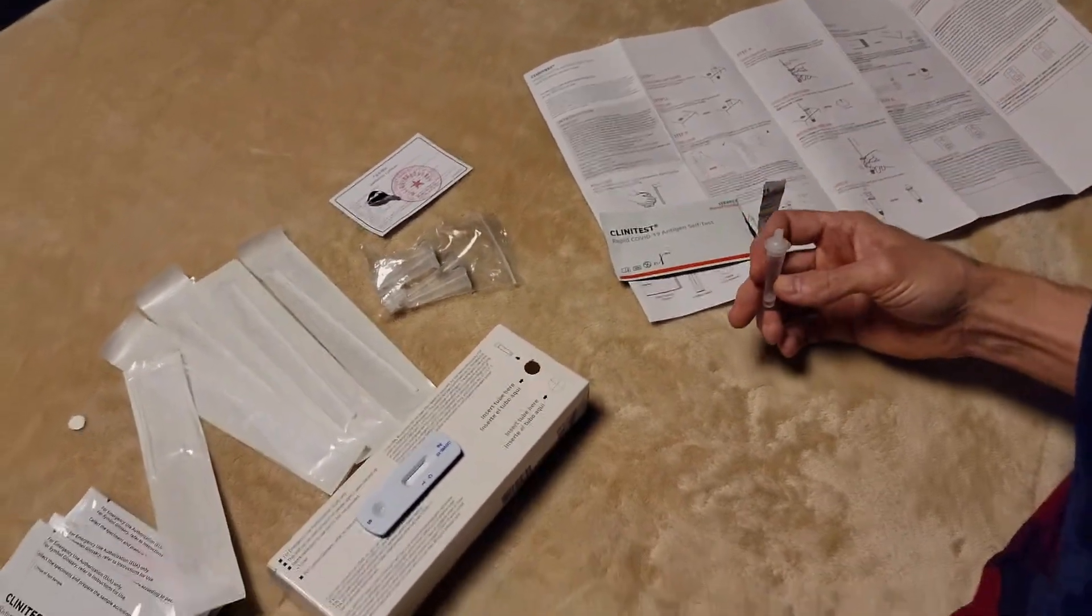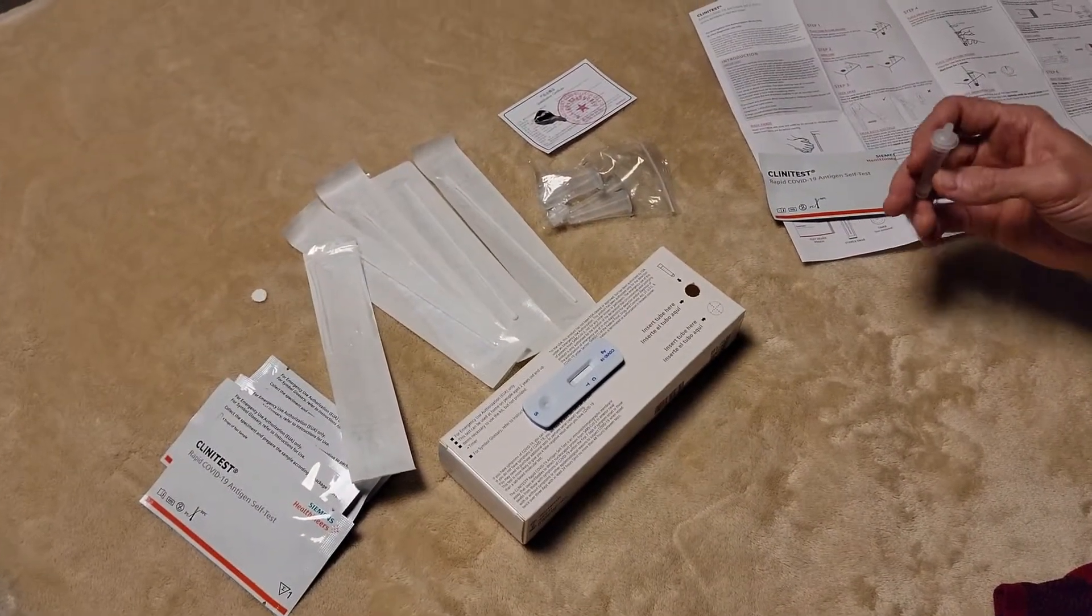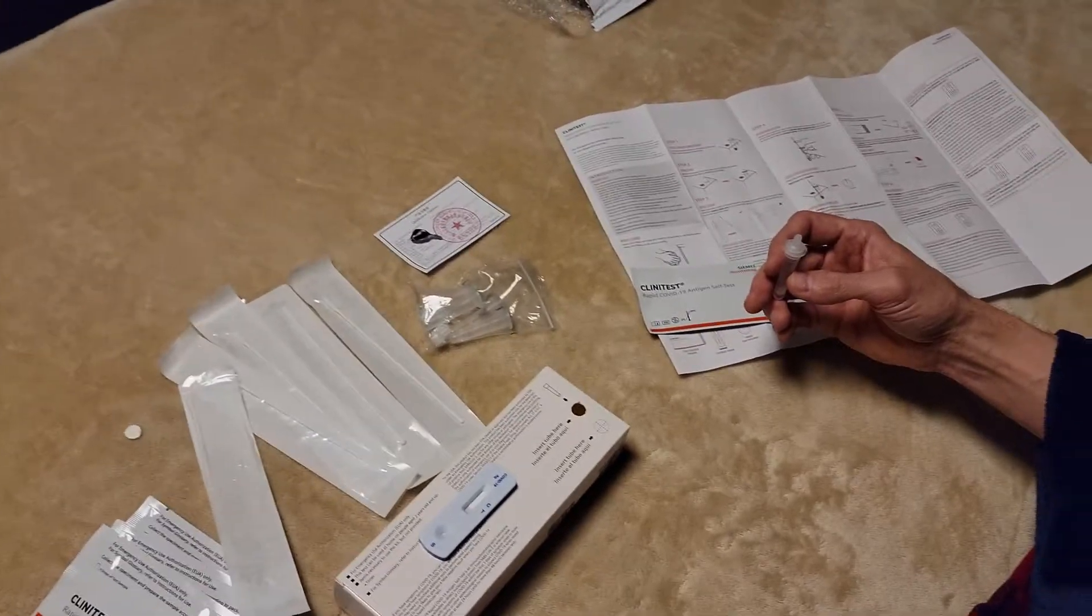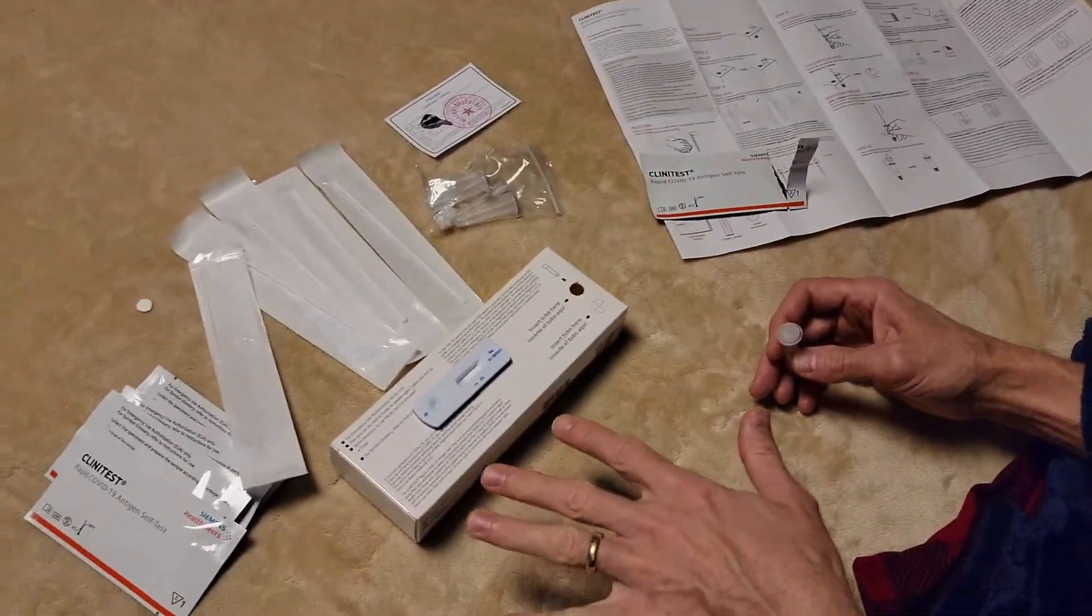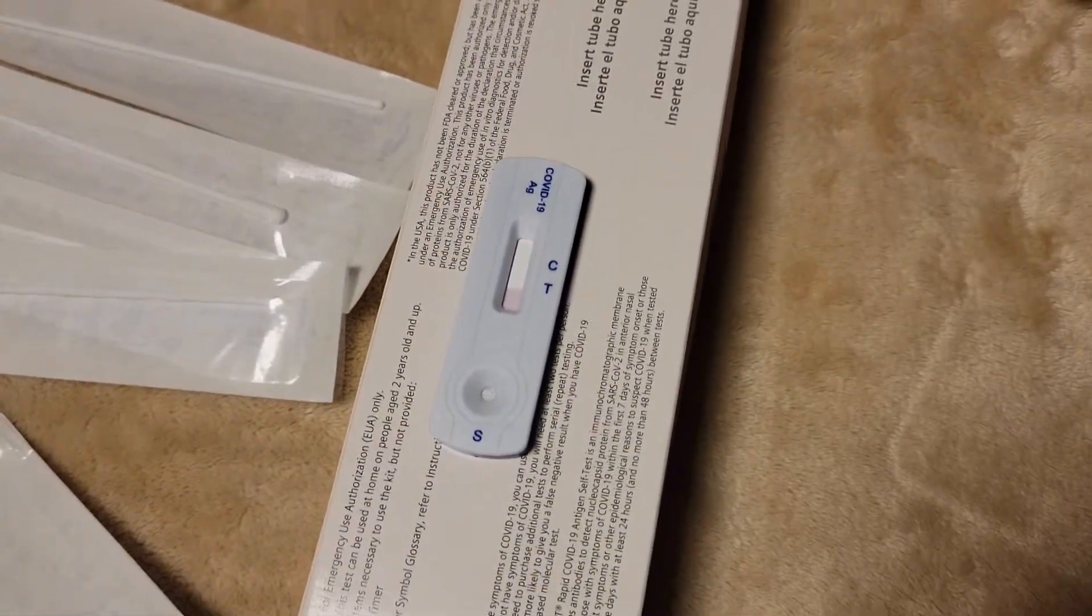Okay, and now we're going to wait 15 minutes. So it's 7:58. So at 8:13 we're going to check and see how that is. So while you're waiting, that stays level and don't mess with it. And we'll see you guys in 15 minutes.